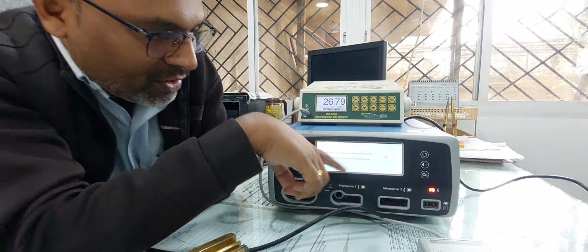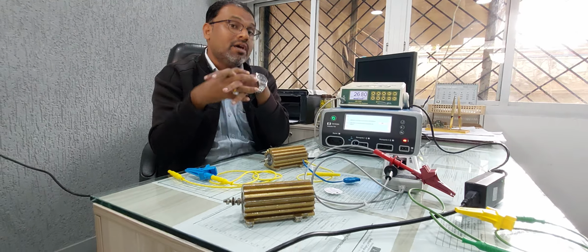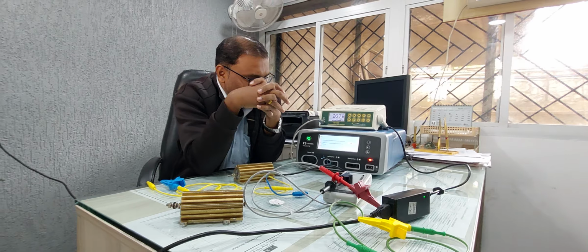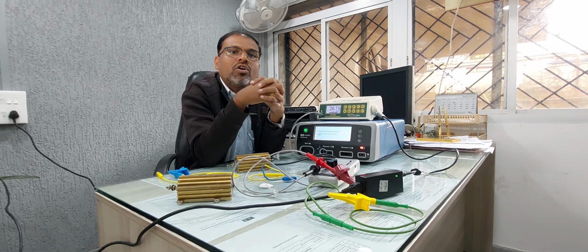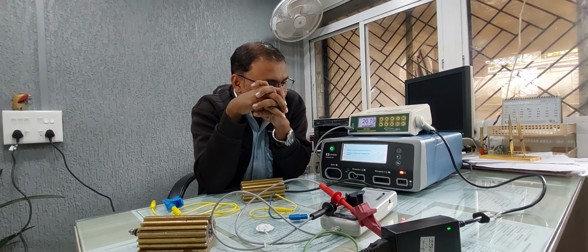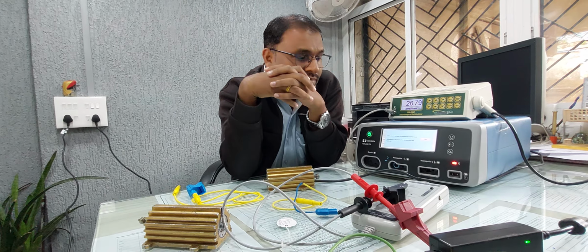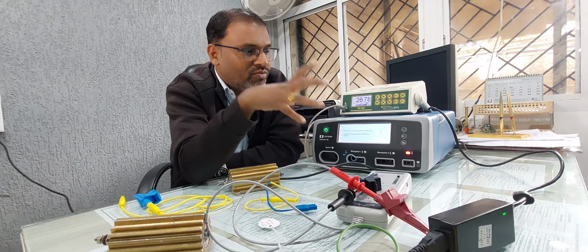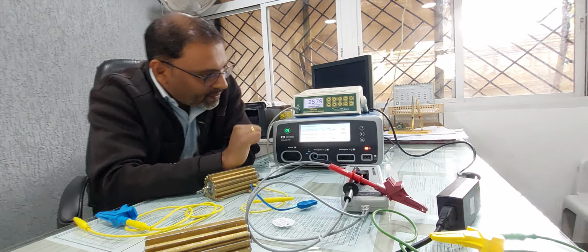Calibration is not a part of preventive maintenance. See, when we have to perform the calibration, this is also a very big question. At the time of PM, cleaning is the main part, right? Checking all the settings is a main part. Checking whether it gives a proper output or not is a very important part. But sometimes people ask that during the PM you have to calibrate the cautery, but calibration isn't required at the time of each and every PM. It is required only when a component gets replaced or its value is fluctuating, only then do we require calibration. Then you have to press OK, right?